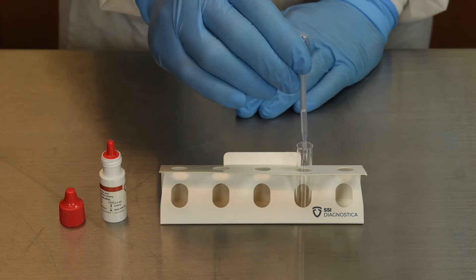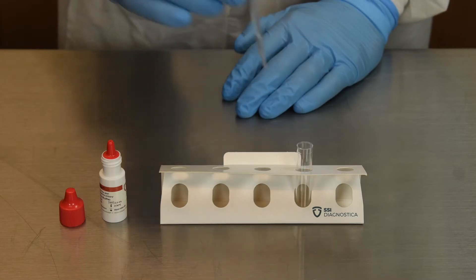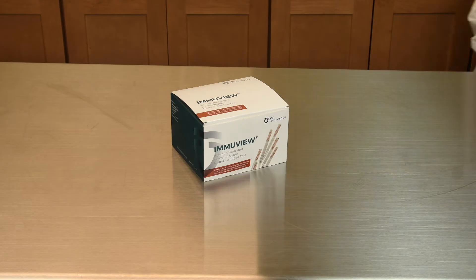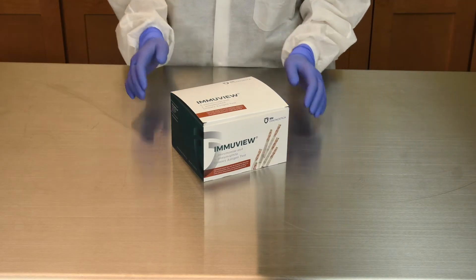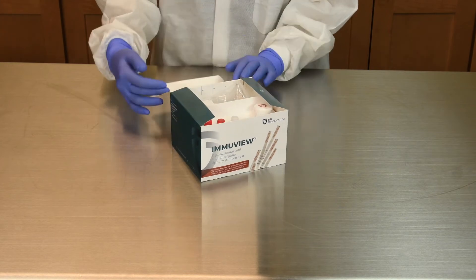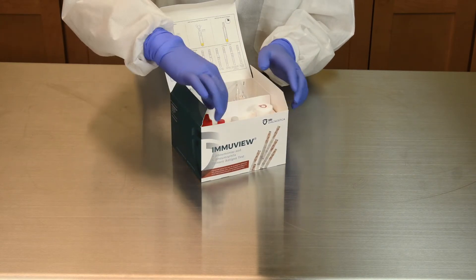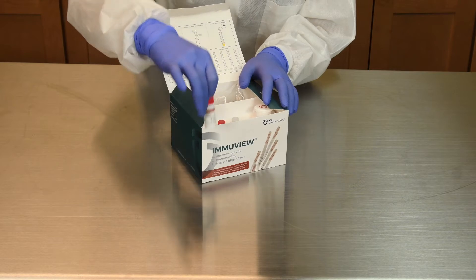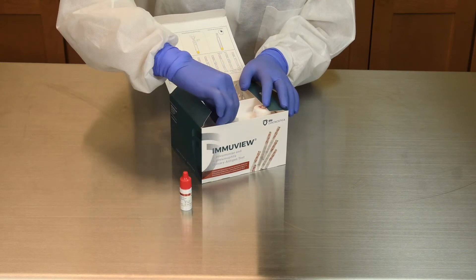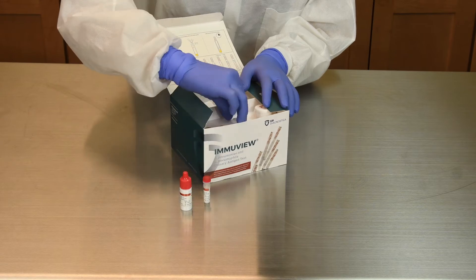Because S. pneumoniae is a leading cause of community-acquired pneumonia and Legionella pneumophila causes costly hospital and ICU admissions, quick, accurate, and easy diagnosis is crucial. The ImmuView PNL 2-in-1 test offers clinicians a simple-to-use immunoassay enabling a confident diagnosis of both S. pneumoniae and L. pneumophila simultaneously within 15 minutes.